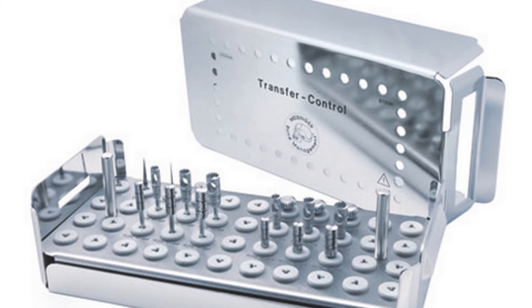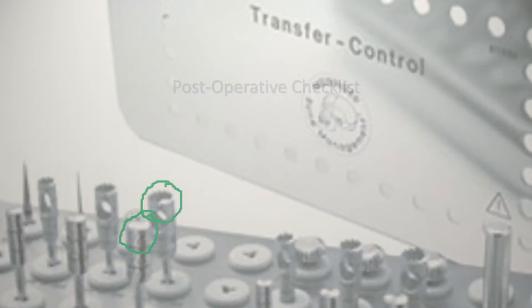This is another transfer control kit that Meisinger offers, with a few more bells and whistles. The one I showed is around five to six hundred dollars US; this one is in the thousand to two thousand dollar range. Both achieve the same thing. Anecdotally from my own experience, we basically just end up using the large burr and the large preparation burr anyway — so in essence, that's all you really need to order. But if you like having complete kits, this is an excellent kit to obtain.